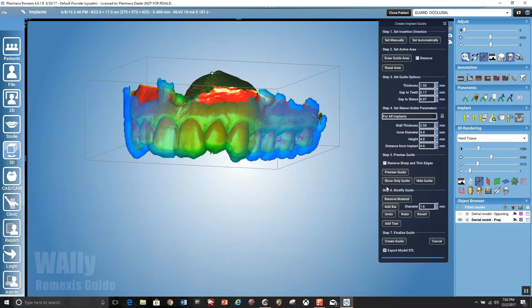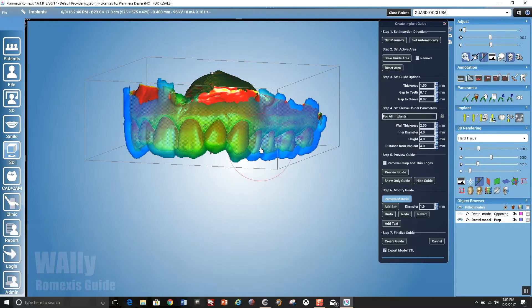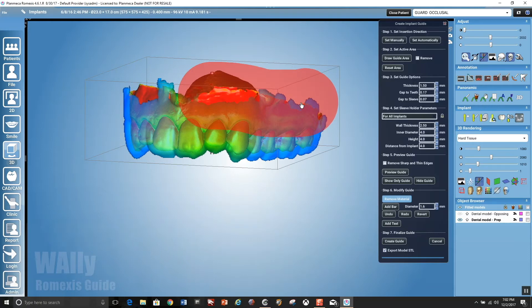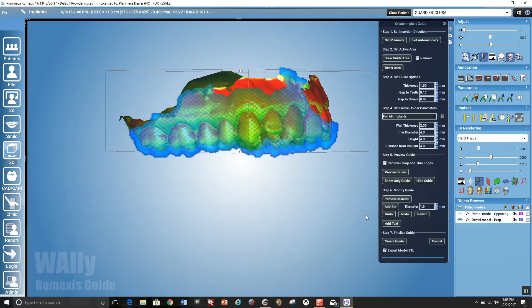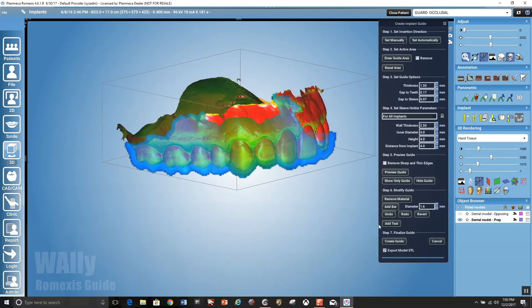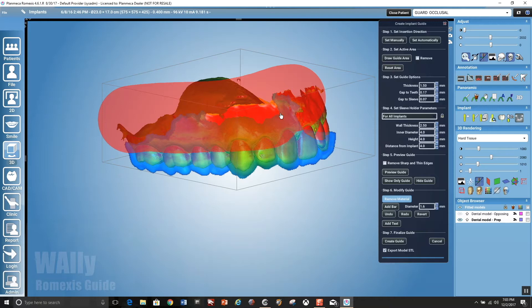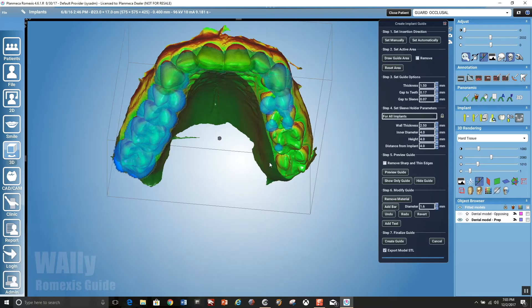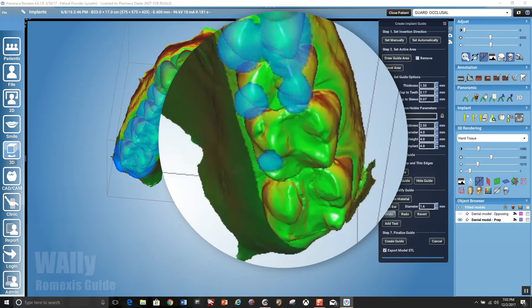Now what you need to do is simply remove excess material using the remove material, and you right-click and drag to alter the size of that eraser. And you want to get it to where it's just meeting the undercut area on the facials. Now, you have to be careful because it will go off to the other side. In this instance, if you take a look, I'm doing this right side. But if you look now and you rotate the model, I erased accidentally the contralateral side.